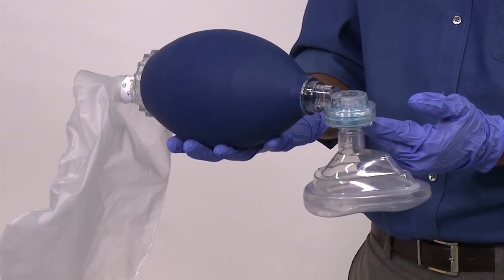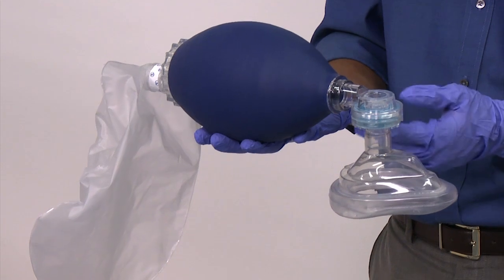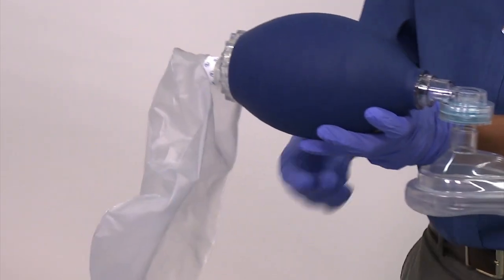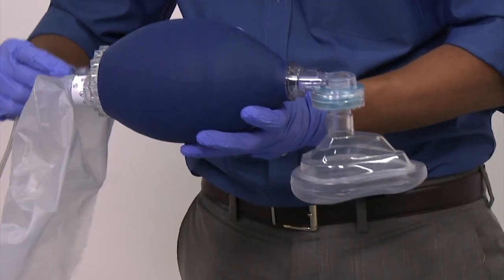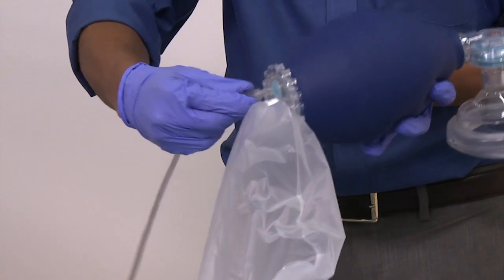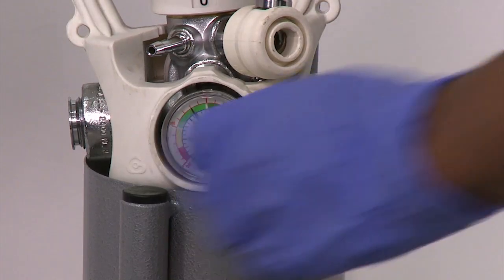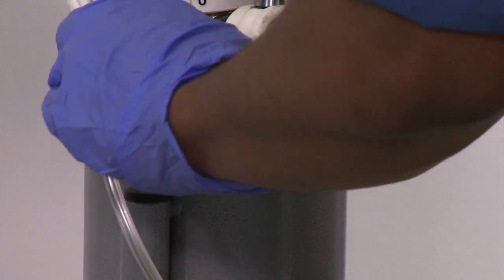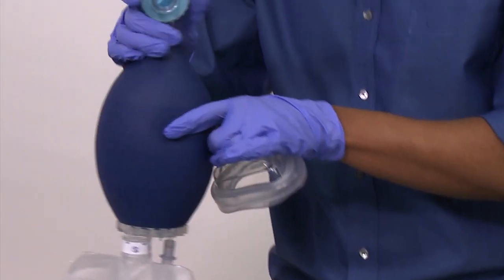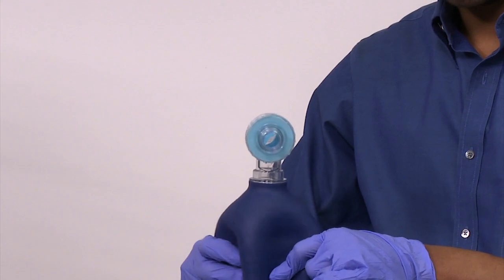The device consists of three parts. The bag is a self-inflating air chamber and can be fitted to an oxygen reservoir to supply supplementary oxygen to the patient; it is connected by a tube to an oxygen flow meter at the wall or to a cylinder. The valve acts one way, allowing air from the bag to flow into the patient's lungs and preventing deoxygenated air returning to the bag during expiration.